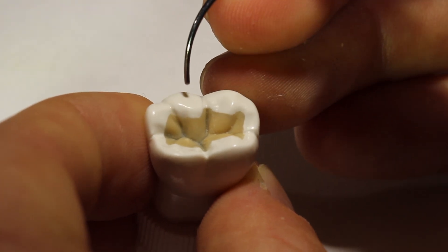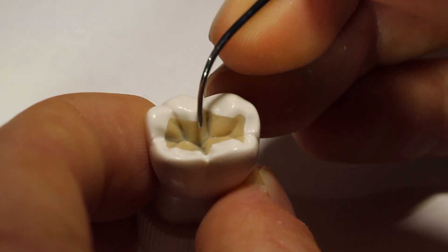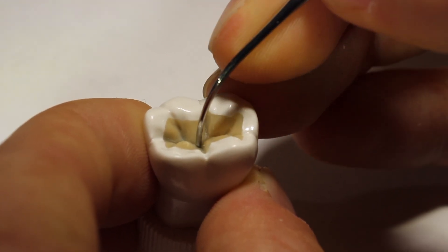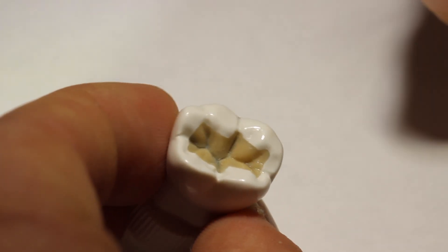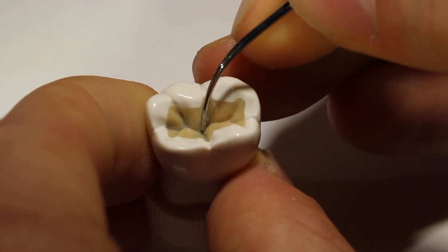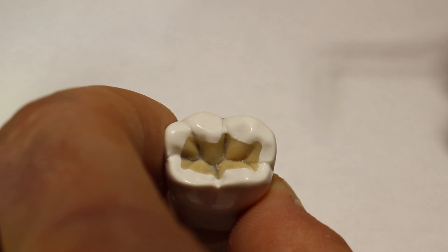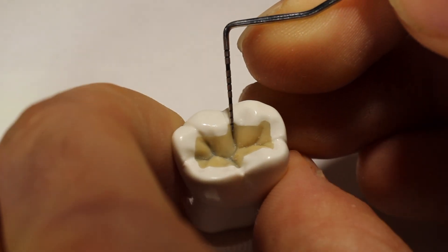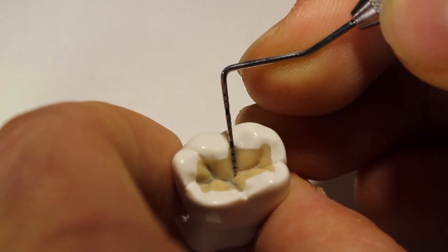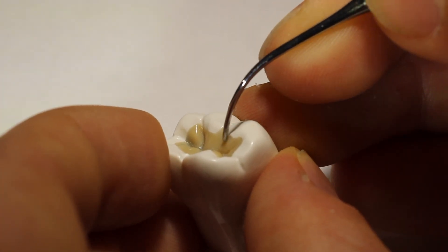I like to take my instrument on the model tooth first, put it on the top of the cusp tip, then quickly move it into the pit, and repeat that action several times. What that does is build a bit of muscle memory of what that feels like. Then go to your actual tooth that you're waxing up and do the same thing — you can feel if that central pit is at the same location and depth. You can also use your perio probe to measure exactly how far away that pit is on your model tooth and on the tooth you're working on. One important aspect of waxing up is making sure that you have a continuous contour on your tooth.